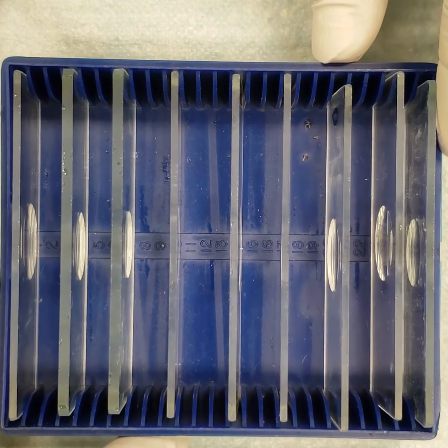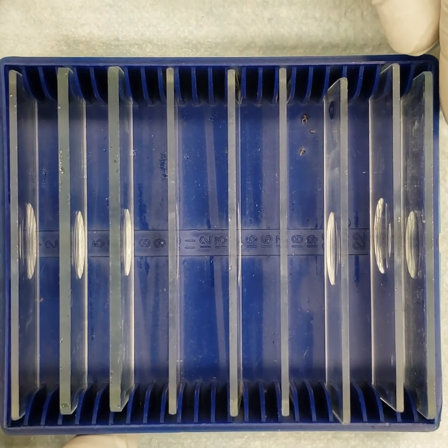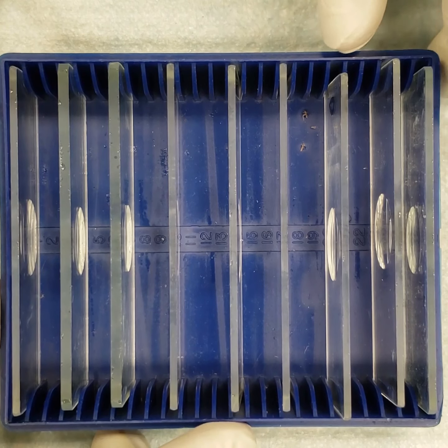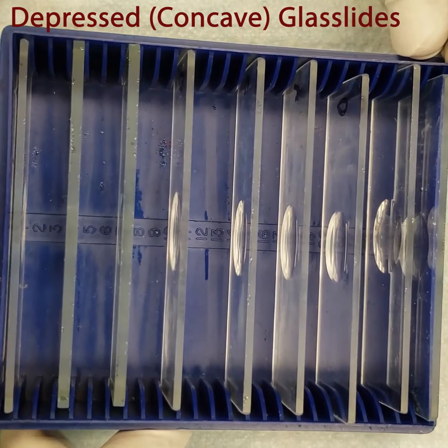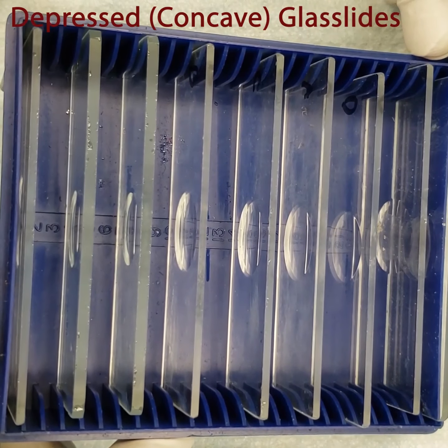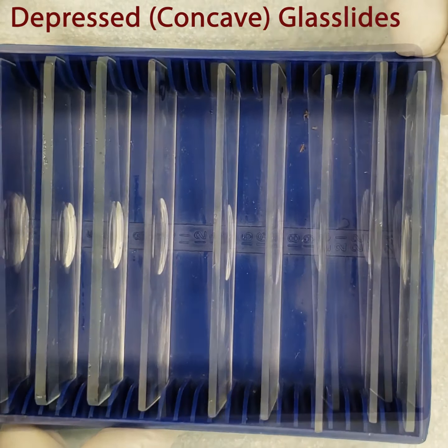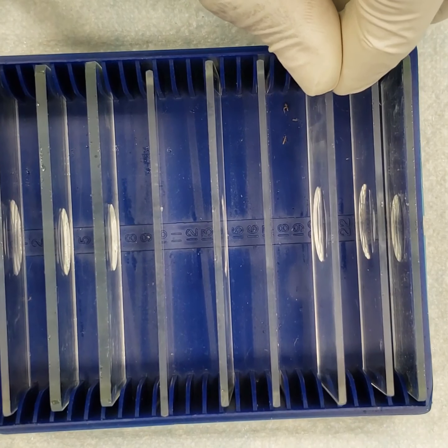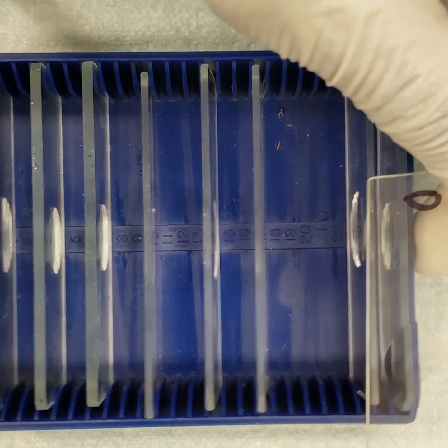Alright, so for the microscopic part of the urinalysis, what you need to do is to have a concave glass slide. You can also call it a depressed glass slide. As you can see in the video, it has a concave depression in it, and that's where you put your sample. Now you just have to take out the slide and start.